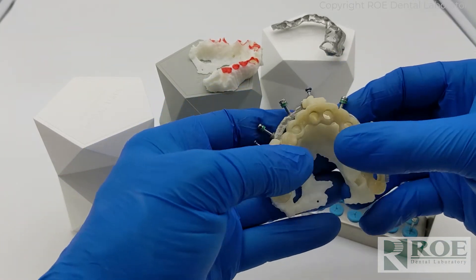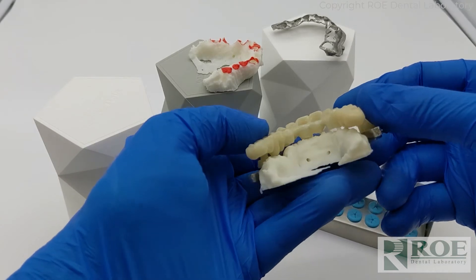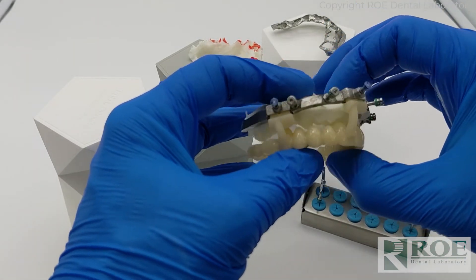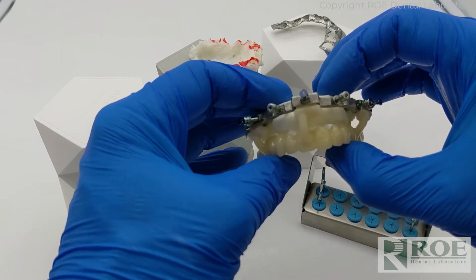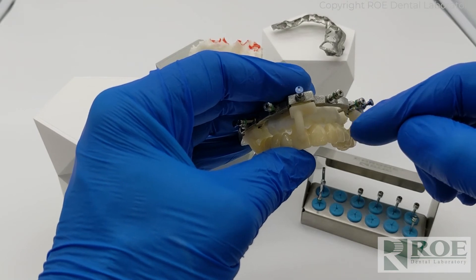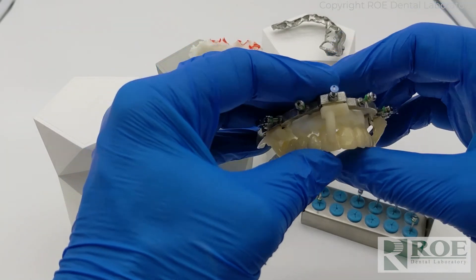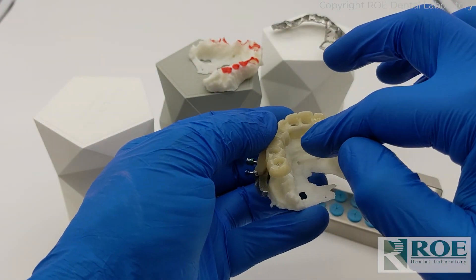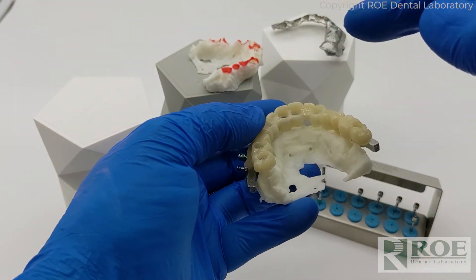You have the option on some of these cases. This prosthetic is quite thick, actually a very nice thickness for a prosthetic. But you'll see there's some limitations where you can only really get eight or nine millimeters of vertical space. If that's the deal with your case, then it's much more important to adjust the bone than adjust a prosthetic.